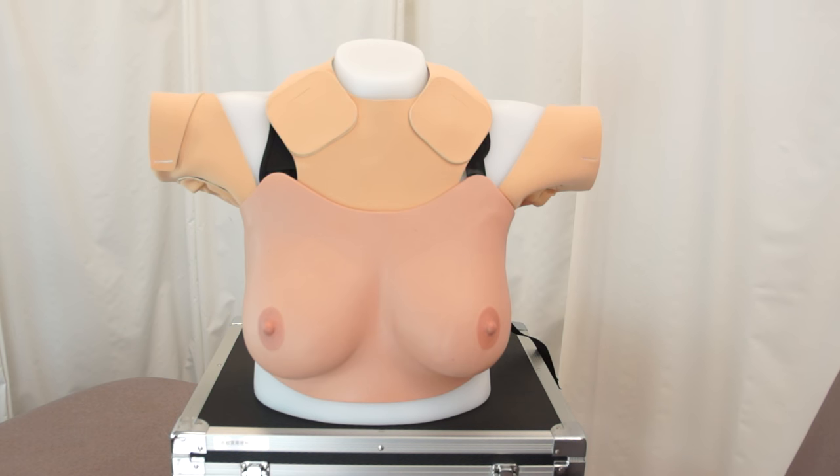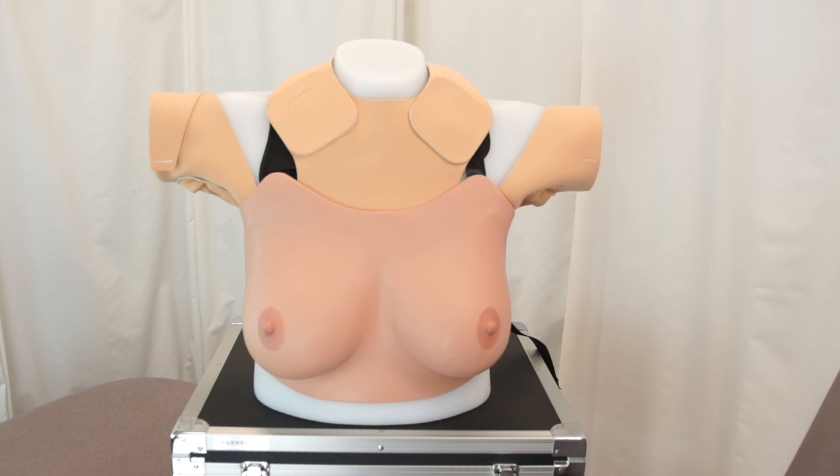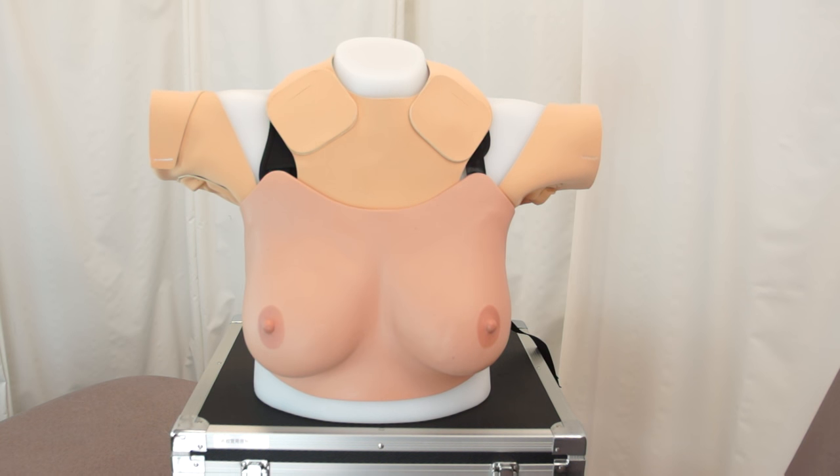The addition of axillary and supraclavicular lymph nodes is useful, obviously from a medical examination standpoint, but the knowledge of what lymph nodes feel like and their location is also very useful for patients who have been diagnosed with breast cancer, as it gives them some ability to monitor their own condition and, if they notice any changes, contact health professionals in a timely manner.